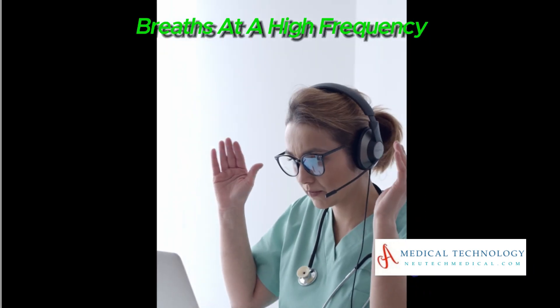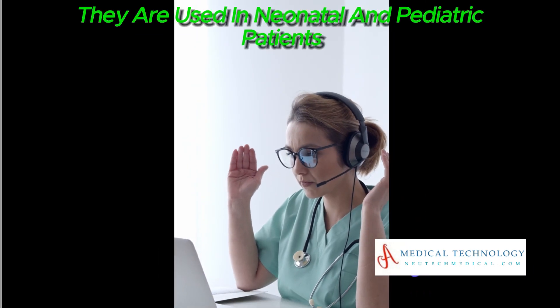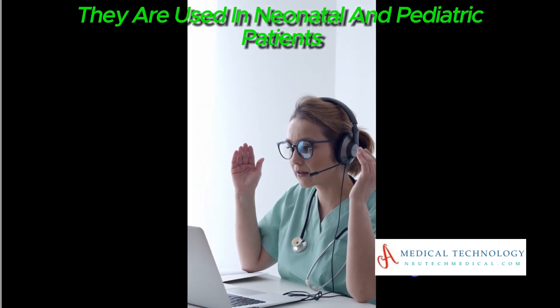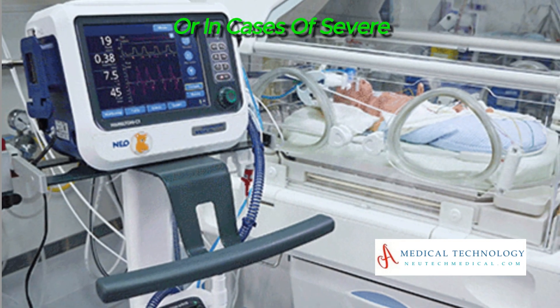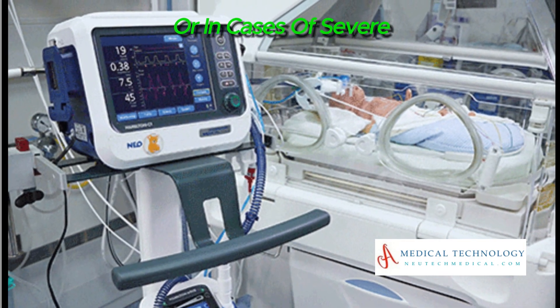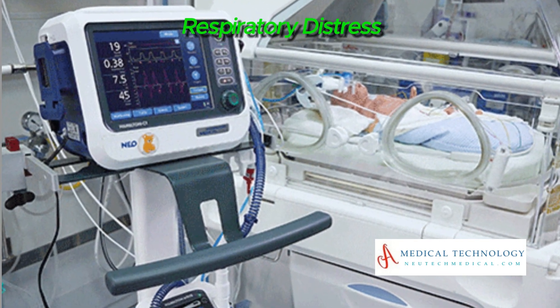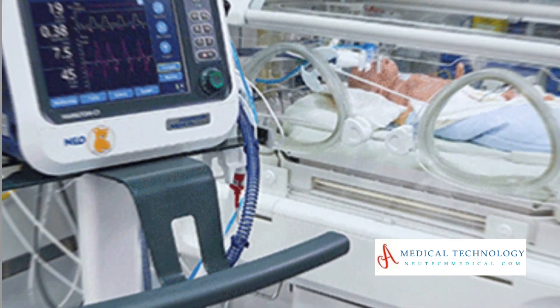High frequency oscillatory ventilators (HFOV) deliver very rapid and small volume breaths at a high frequency. They are used in neonatal and pediatric patients or in cases of severe respiratory distress.